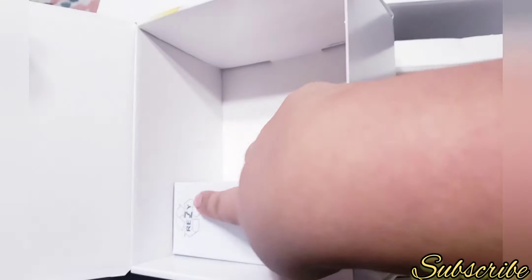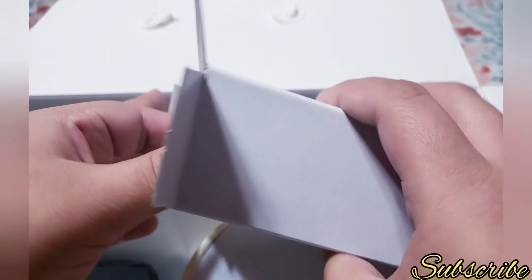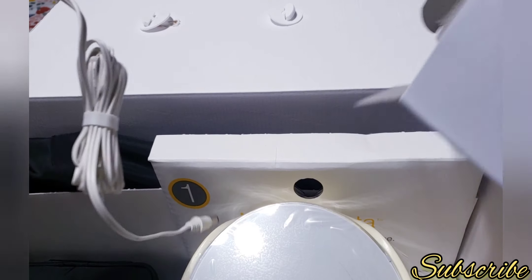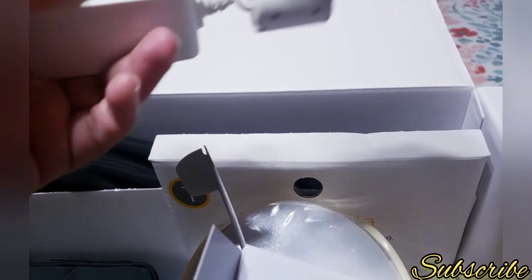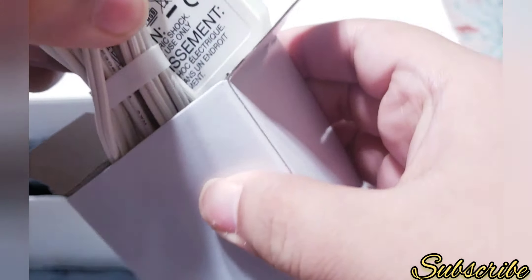It also comes with a power plug, as you can see. This is the plug that connects to the breast pump. This breast pump is chargeable, so you could use it when it's charged without this plug and take it everywhere you want to go. That's a plus.